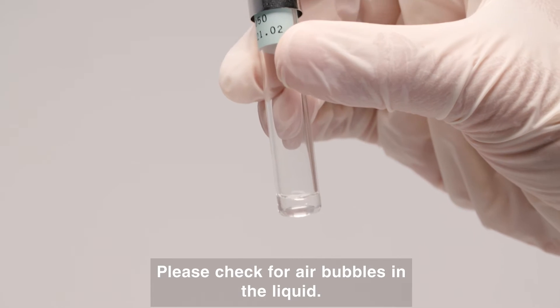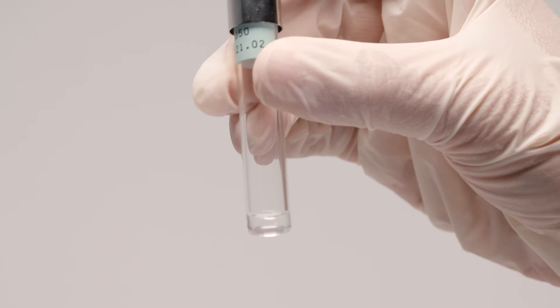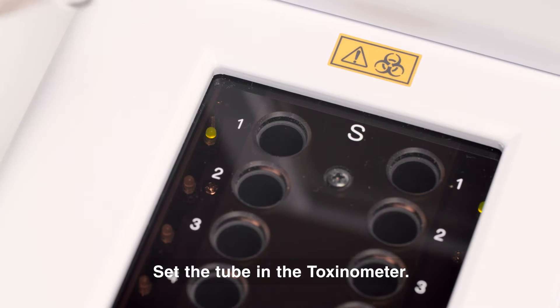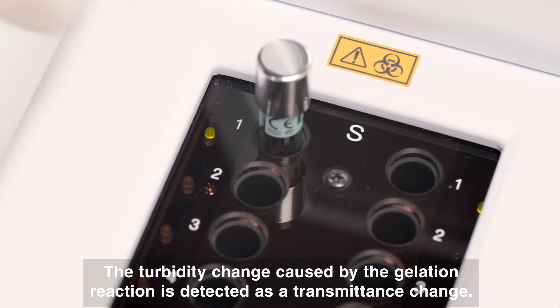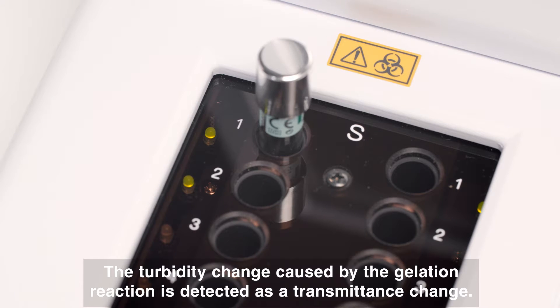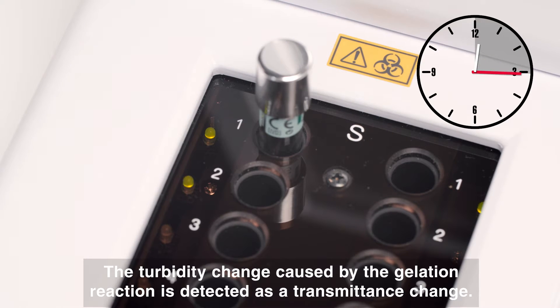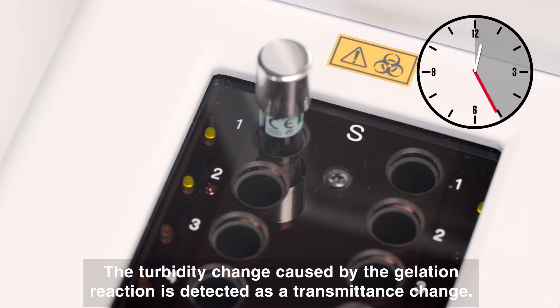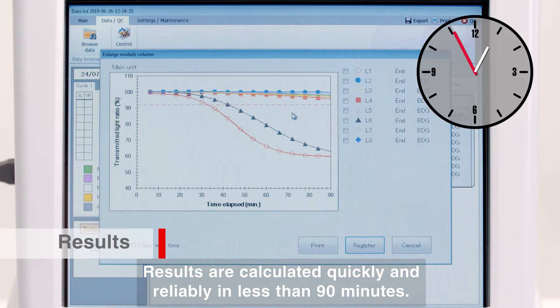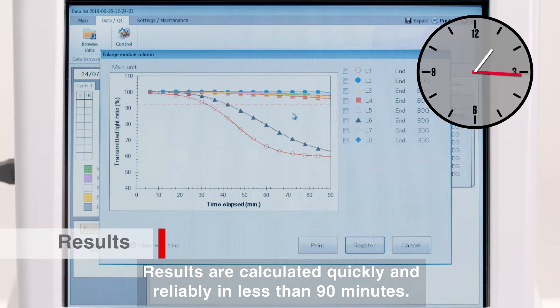Please check for air bubbles in the liquid. Set the tube in the Toxinometer. The turbidity change caused by the gelation reaction is detected as a transmittance change. Results are calculated quickly and reliably in less than 90 minutes.